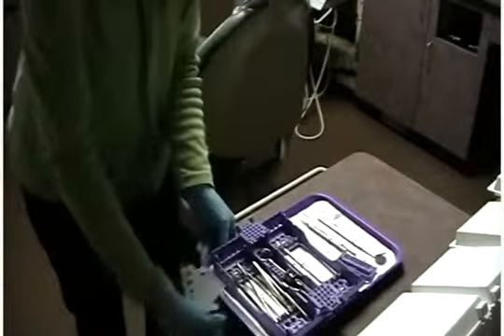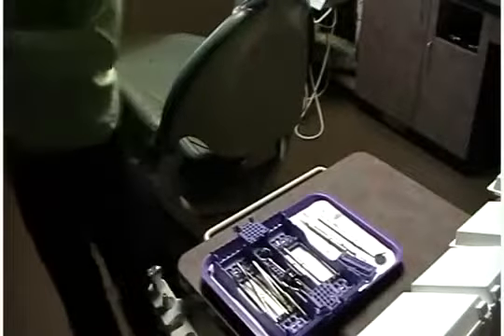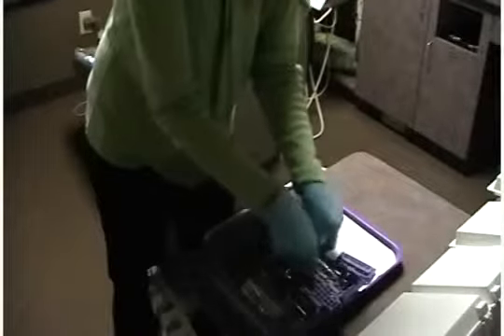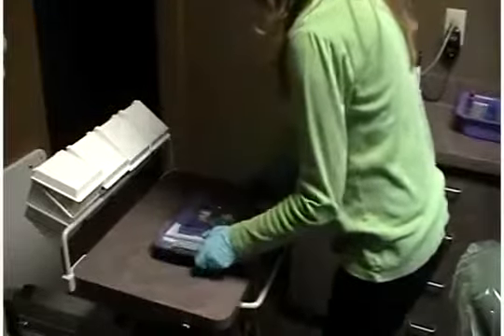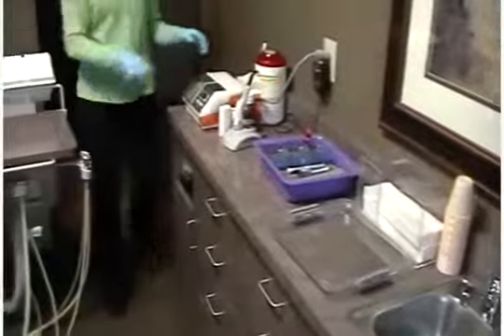Place instruments back into their cassette and place any burr or endo files into the appropriate organizers. Using cassettes will help protect personnel from accidental instrument sticks and also protect the instruments from unnecessary wear, giving them a longer life. In addition, with all the instrumentation in holders, you will save time during your cleaning and sterilization processes because they eliminate any individual instrument handling.